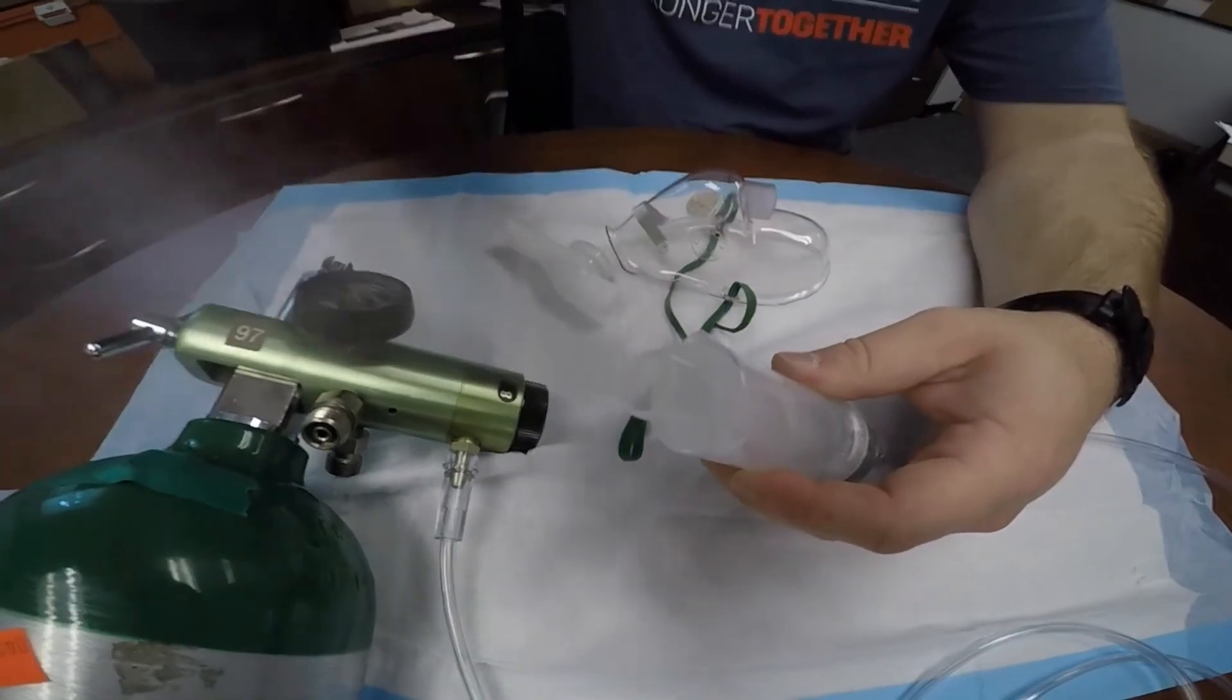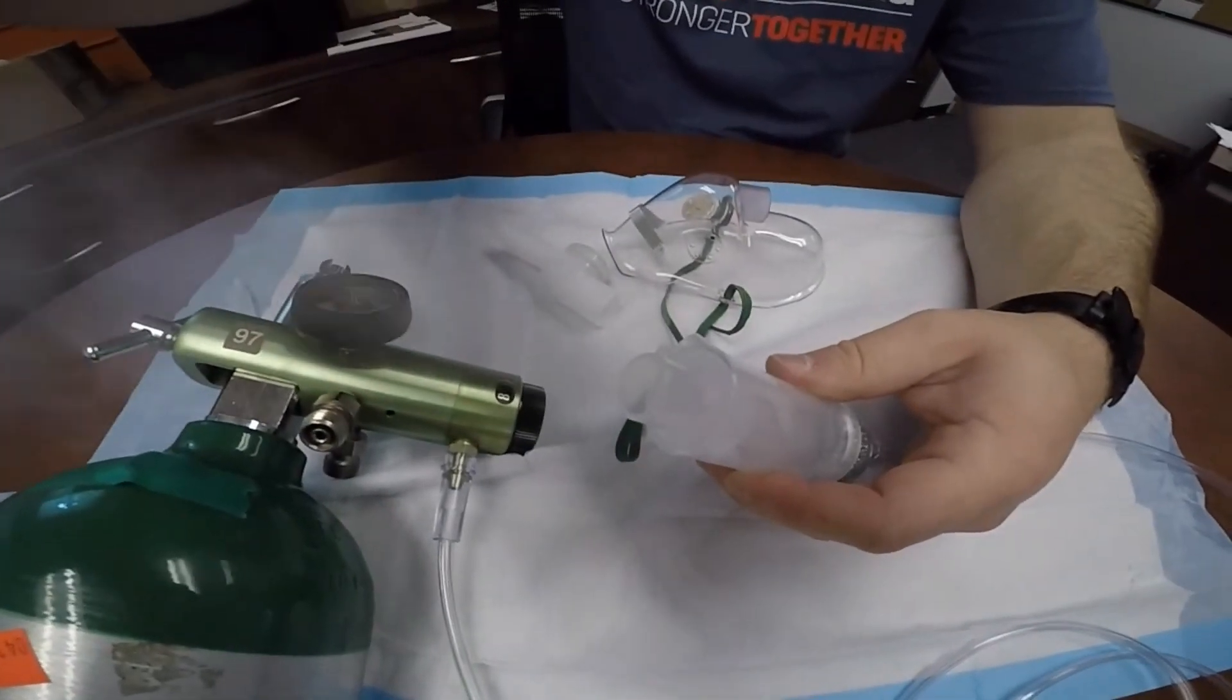If you were to connect to CPAP, you would need the adapter at the top, and you can insert it into your CPAP device.